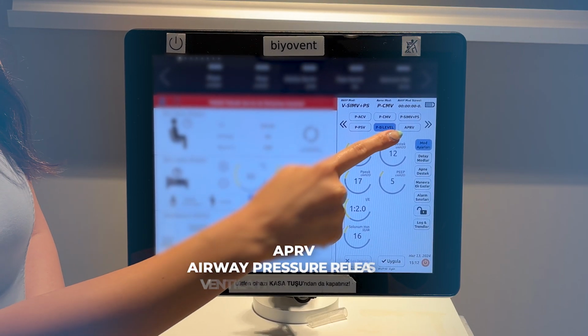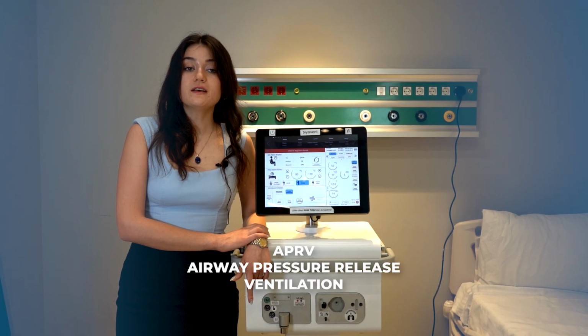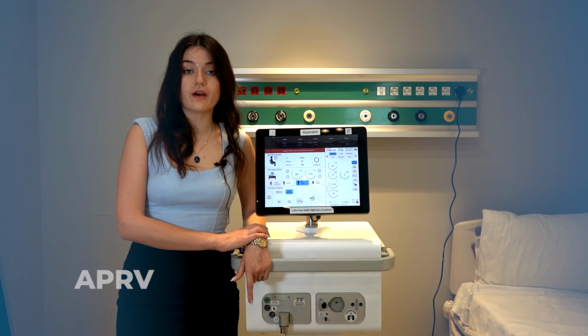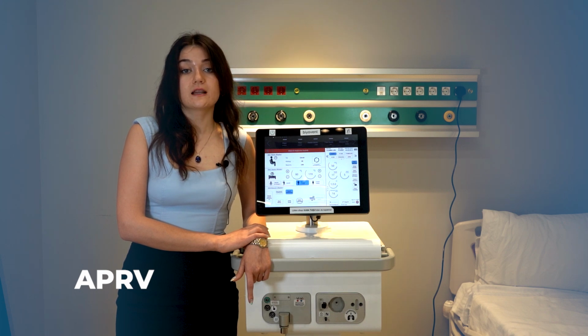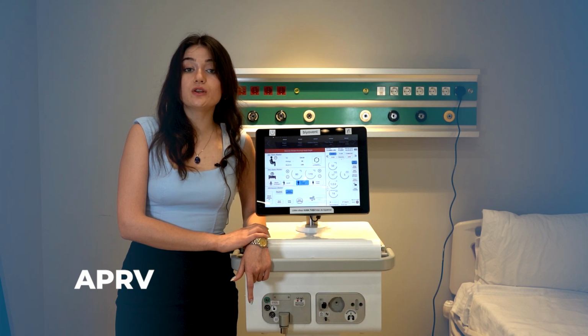Lastly, we have Airway Pressure Release Ventilation Mode. This mode applies continuous positive airway pressure but allows pressure releases at set intervals. In this mode, there are two primary pressure levels, high pressure and low pressure. This mode allows more homogeneous lung ventilation while maintaining high CPAP levels for oxygenation and providing rest periods for the lungs. It can be especially effective in conditions like acute respiratory distress syndrome, helping keep the lungs open and facilitating oxygenation while allowing the lungs to rest.